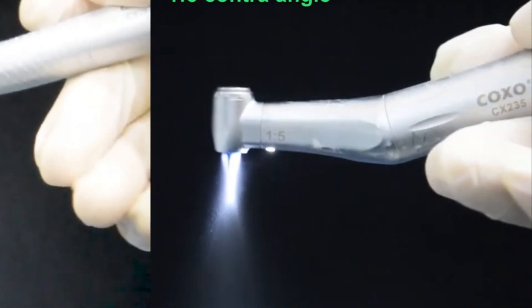The drill also doesn't get as hot as the turbine-powered drill, lessening the amount of extra gadgets required to use it.